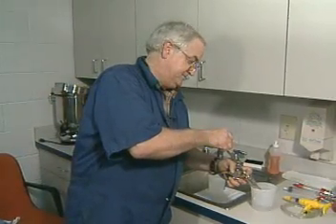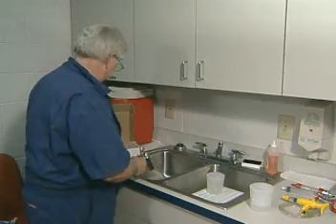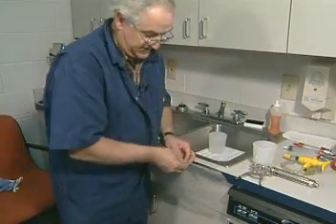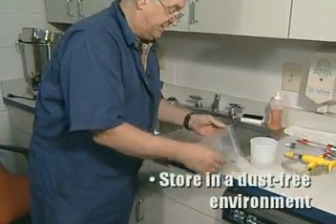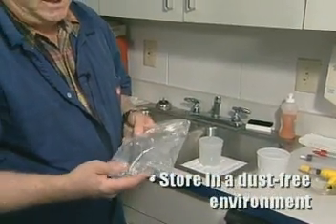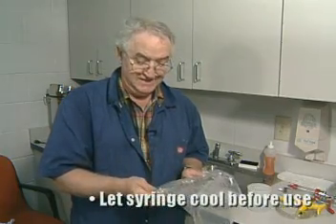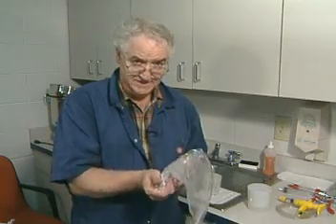Flush three times through the syringe. After cleaning, we now have one final sanitizing step that allows us to store the syringe in a clean bag such as a ziplock. These should be stored in a dust-free environment, and one of our favorite places around feed yards is literally to put them in the freezer. If you sanitize the syringe and need to use it immediately, it gathers a lot of heat and you need to give it about ten minutes to cool off. It will severely damage modified live vaccines, and if you freeze it, you need to give it time to warm back up.